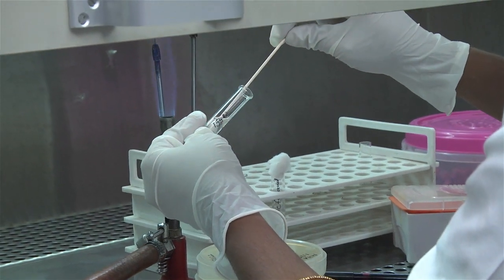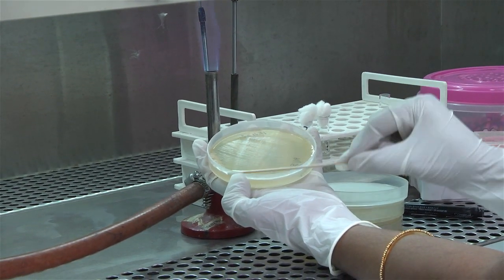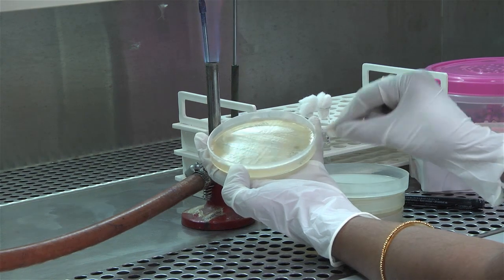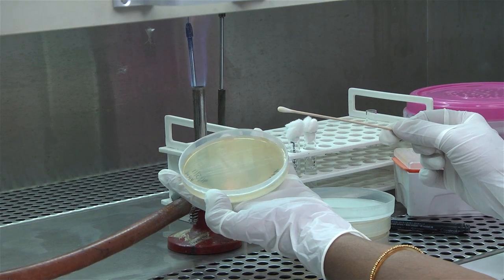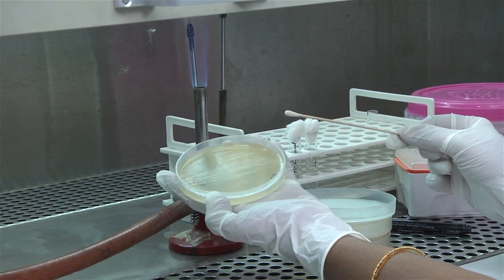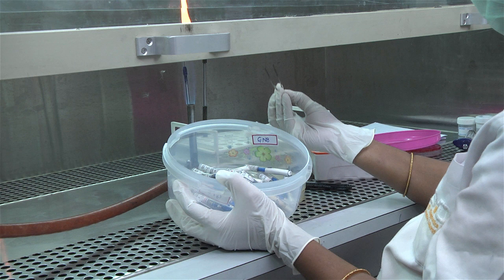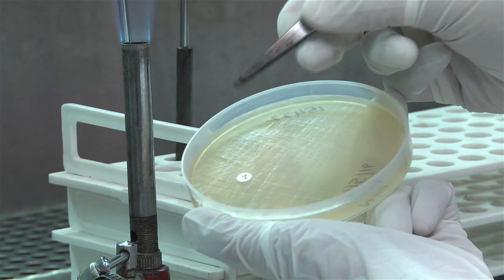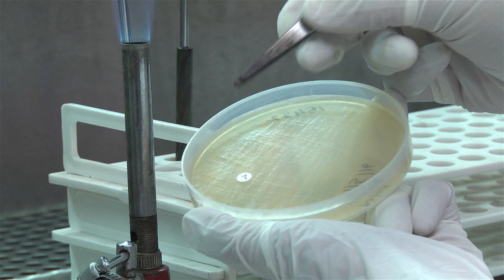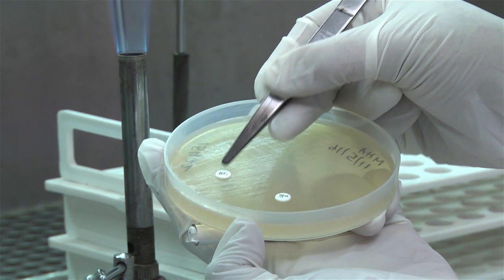Using a sterile swab, inoculate a labelled plate of Mueller-Hinton agar by the lawn culture method as described in the earlier section on culture methods. With the Petri dish lid in place, allow 3 to 5 minutes but no longer than 15 minutes for the surface of the agar to dry. Using sterile forceps, a needle mounted in a holder, or a multi-disc dispenser, place the appropriate antimicrobial discs evenly distributed on the inoculated plate.